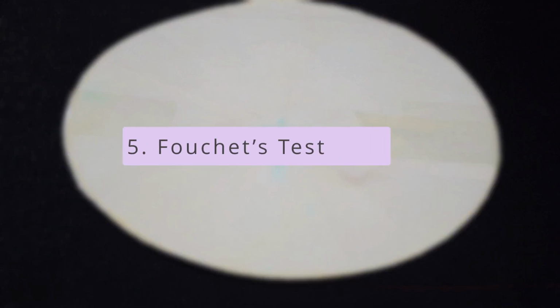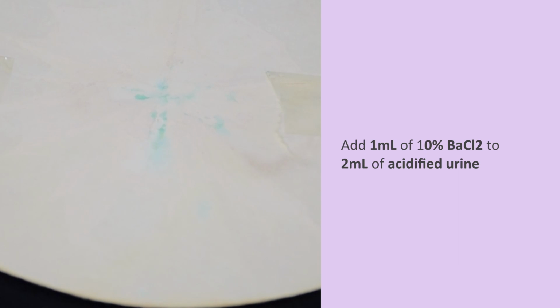Appearance of conjugated bilirubin in urine can provide an early indication of liver disease. Fouchet's test is performed to detect conjugated bilirubin in urine. This test is performed by adding 1 ml of 10% barium chloride to 2 ml of acidified urine.